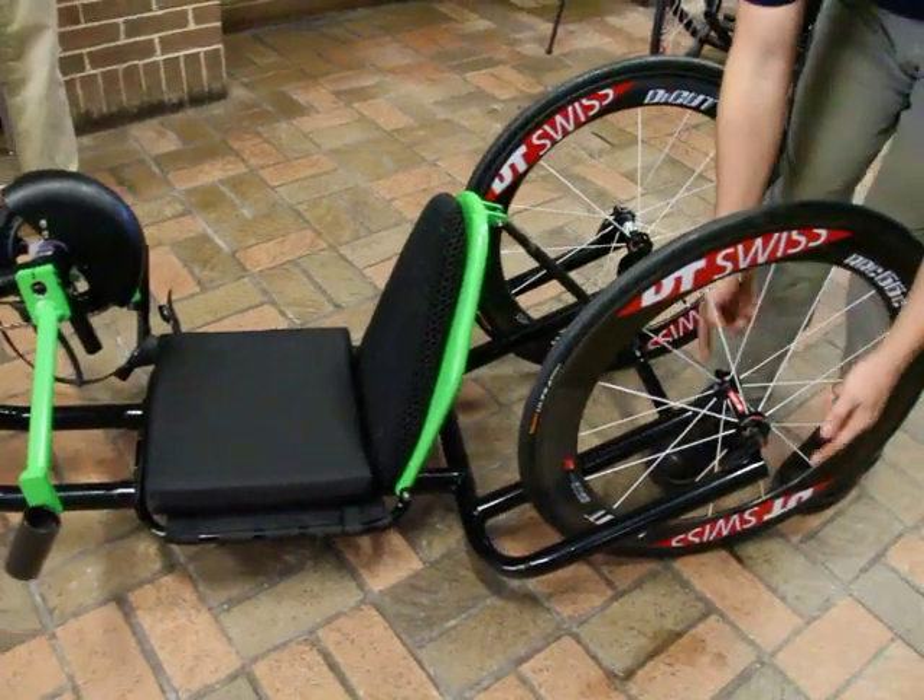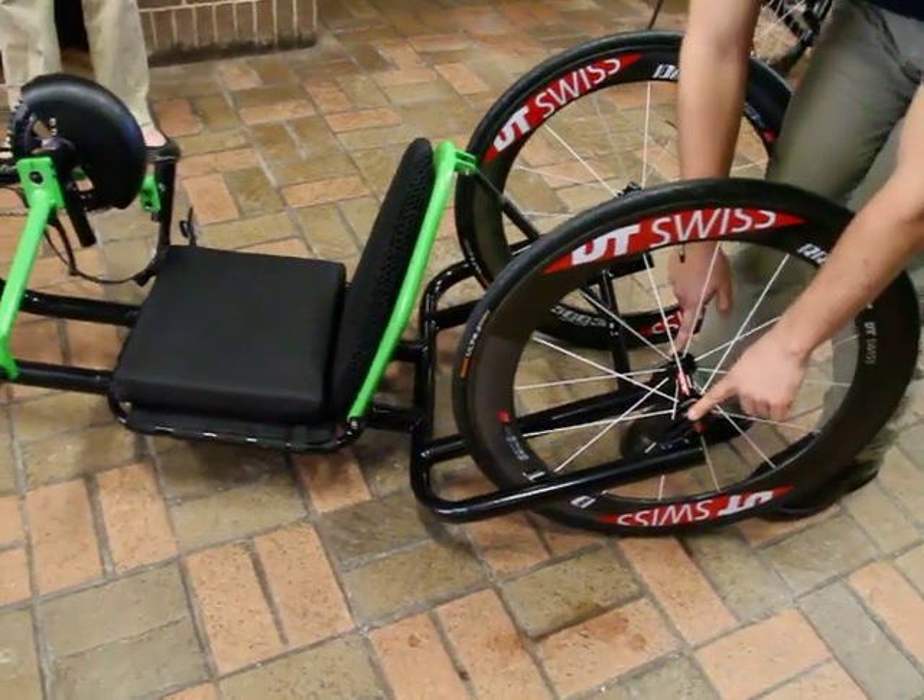In the back of the cycle we've also incorporated quick-release rear wheels, which allow the wheels to come off really easily and they're also very standard.